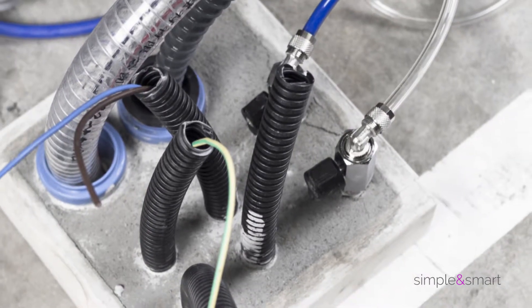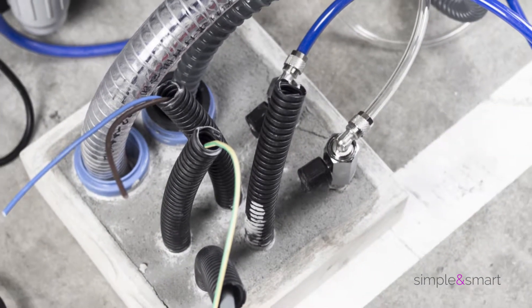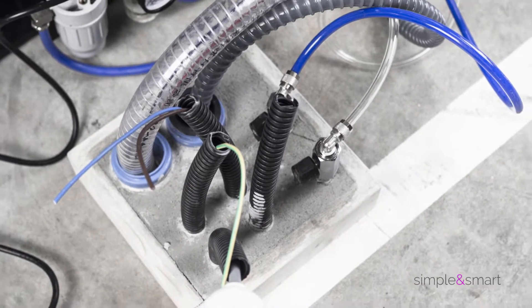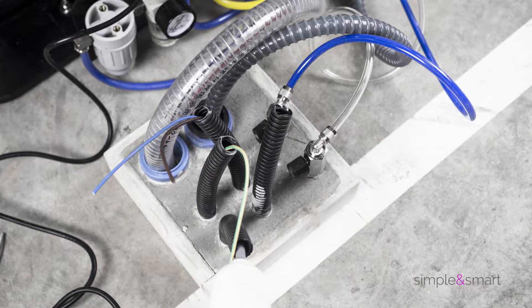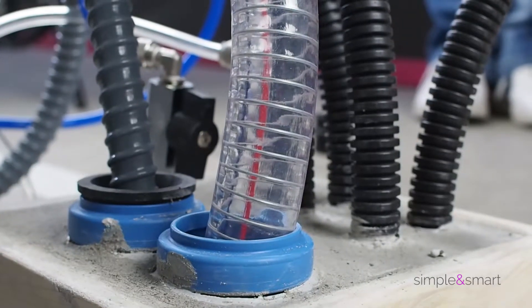We suggest to let the connection pipe arrive as in the sample. It is possible inside a square of 20 by 20 centimeters. In this way, all can be hidden by the unit's plastic cover. We also suggest keeping the drain pipes, water valve, and air valves at floor level.